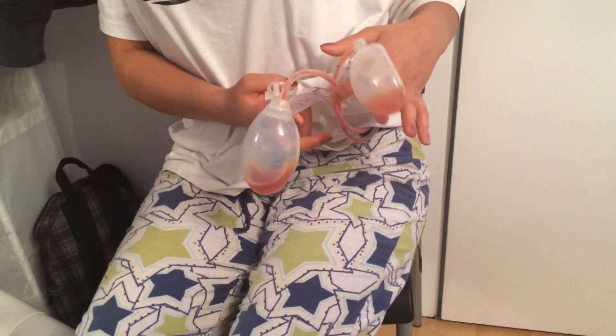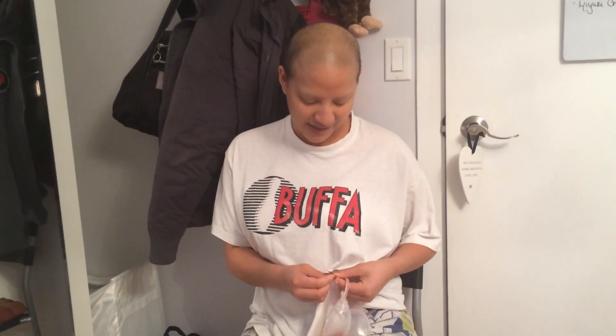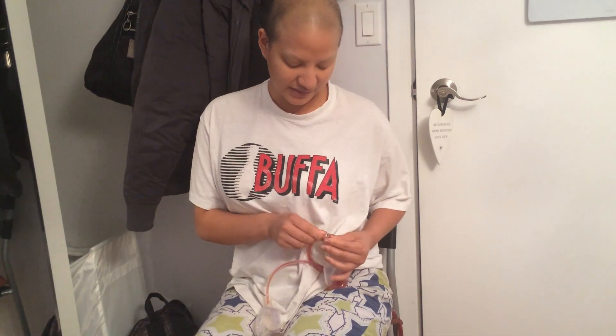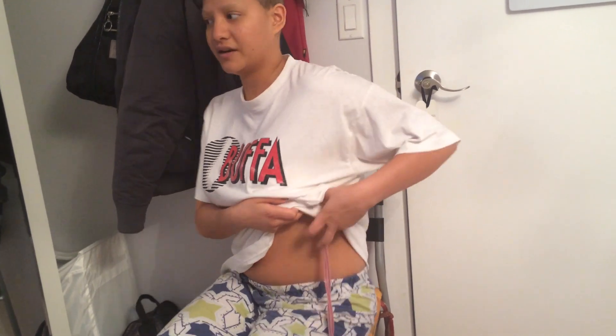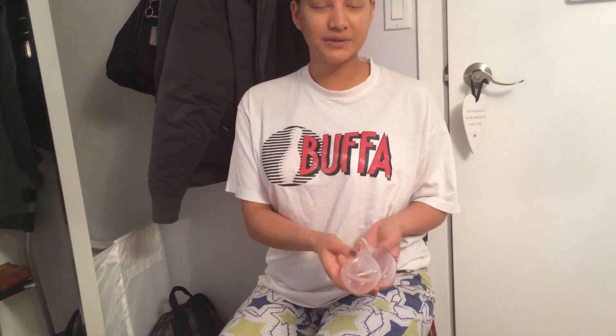What they are basically — right now they're pinned onto my shirt, because if not, they're pretty much hanging off my body and it's uncomfortable. I highly suggest that you do pin them, otherwise they literally just hang out of your body. They're basically tubes that are attached in your breast to your wounds. They're coming out of my breast, attached to my wounds, and they're draining out the excess fluids and liquids that, if they were to stay in my wound, would cause an infection. They're draining the liquid in between my alloderm and my muscle tissue, and we want to drain all that liquid out so that it heals together and heals well with no infection.